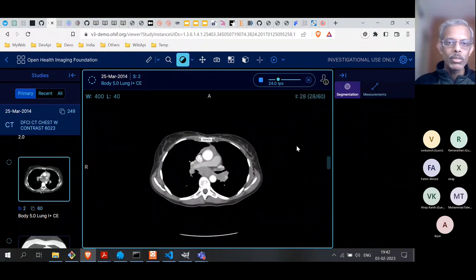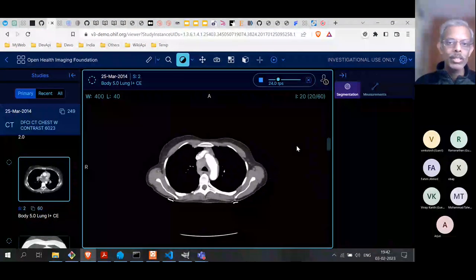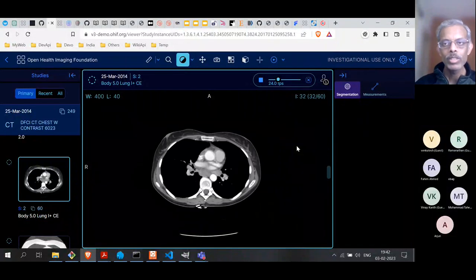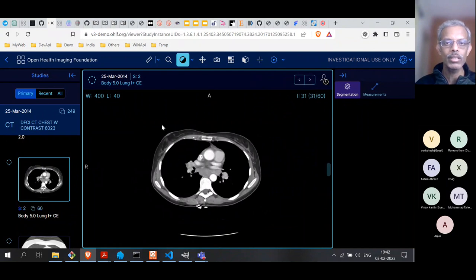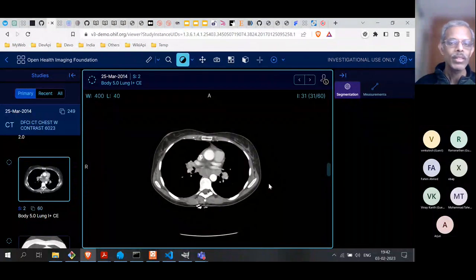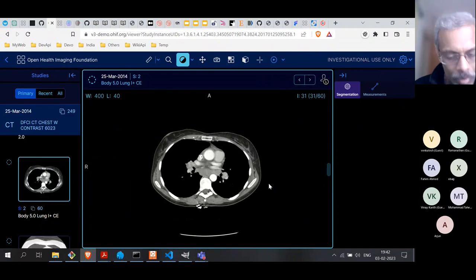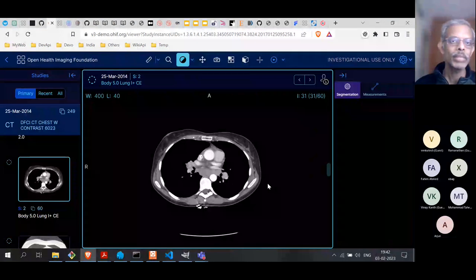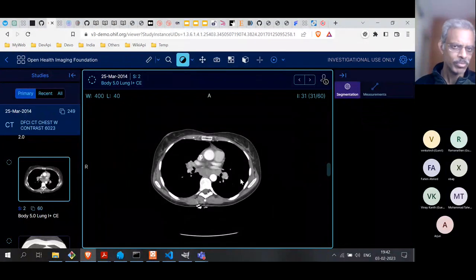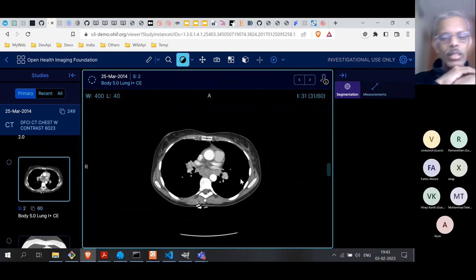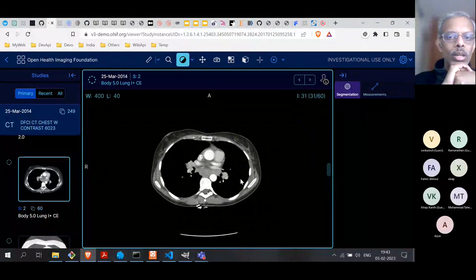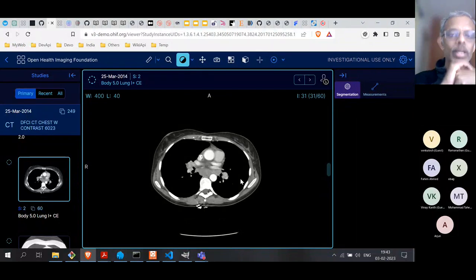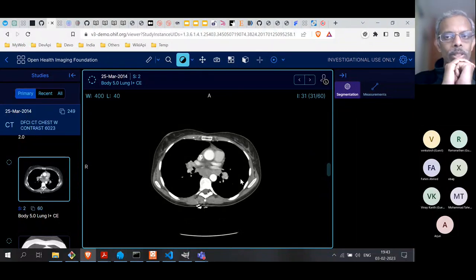Look at the UI — it's very nice. You don't need a standalone application. Everything is built in React, which means that for the surgeon or radiologist, they can run this from any standard browser. They don't need to install anything on their system. This is one of the reasons why this React-based application has become popular — even popular cloud platforms like Google Cloud, Microsoft Azure have integrations with this platform.